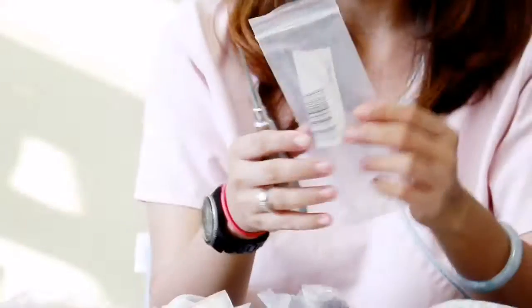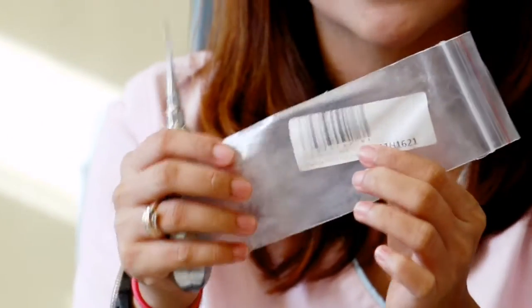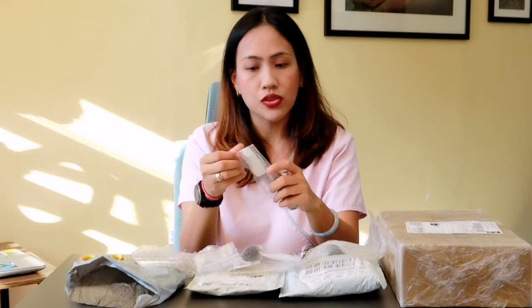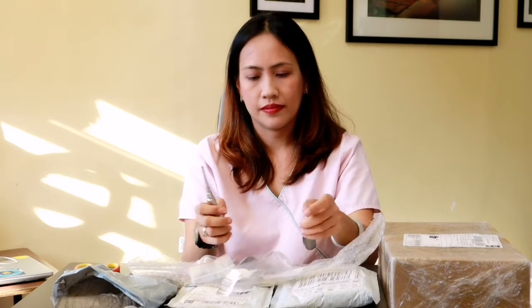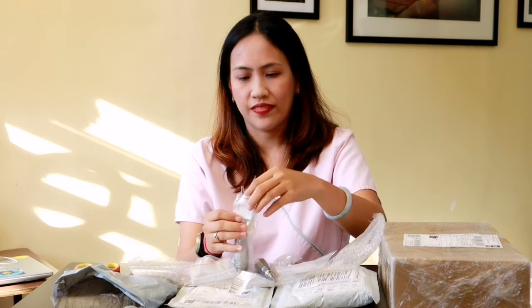These would be very good for my small animal patients of small breeds — cats or kittens, and small dog breeds such as the Pomeranian, Chihuahua, and the like. On each plastic you can see a specific label indicating the size of the dental luxator. So this one is labeled N1 — the small dental luxator. Going forward we have number two, number three, and number four.